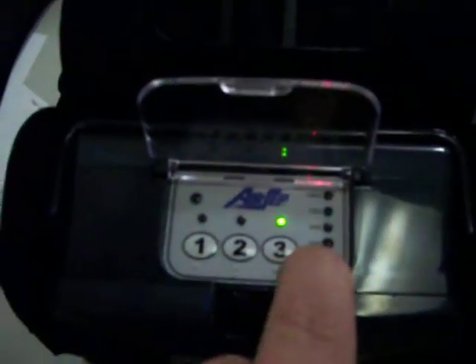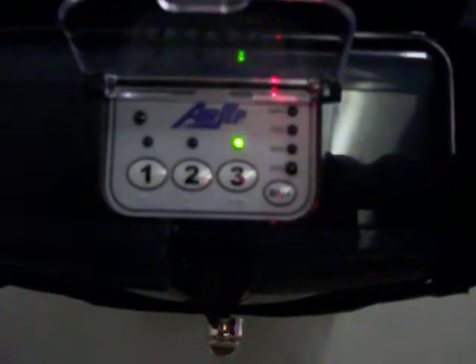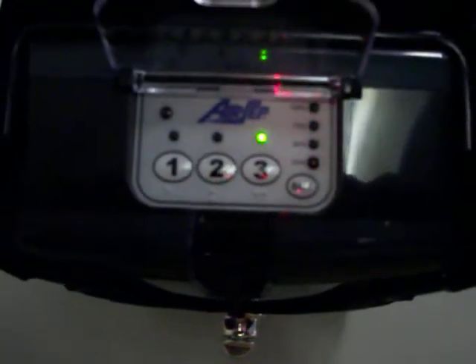This particular unit is very quiet. It'll tell you the battery setting — you've got 25%, 50%, 75%, and 100%. And it's got an alarm here. These are the different places where it tells you the battery life of this particular unit.